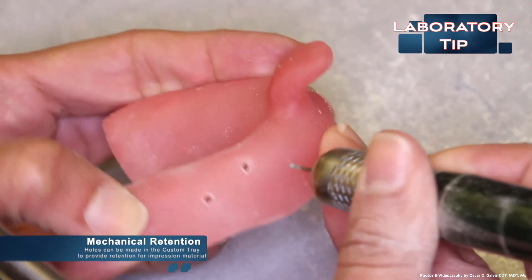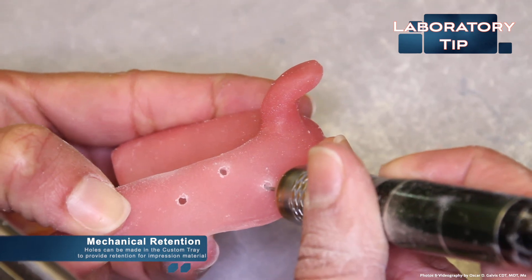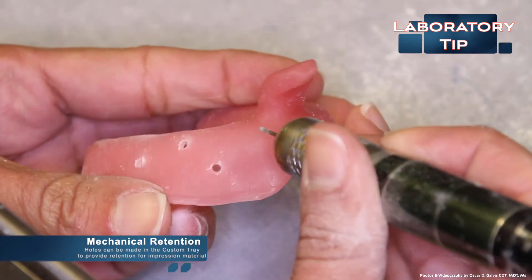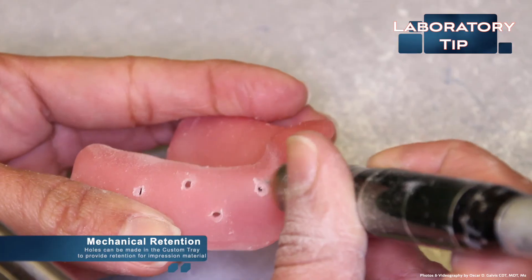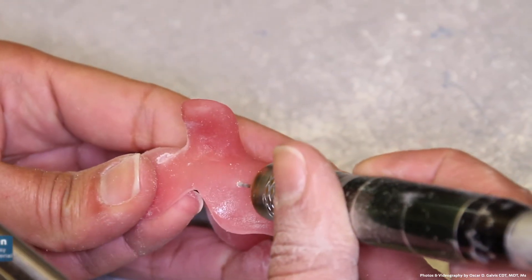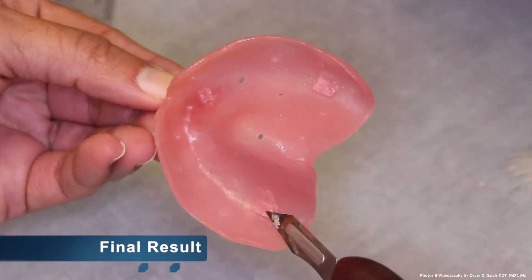Lastly, mechanical retention can be placed into the custom tray by placing holes throughout the custom tray. This will provide retention for the impression material. Even with the use of an adhesive, it's a good idea to have extra retention for the impression material.